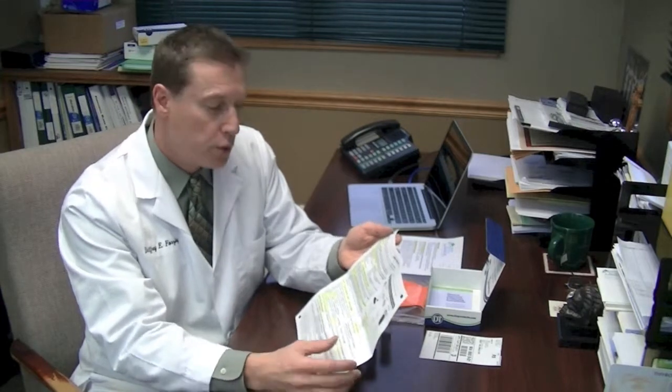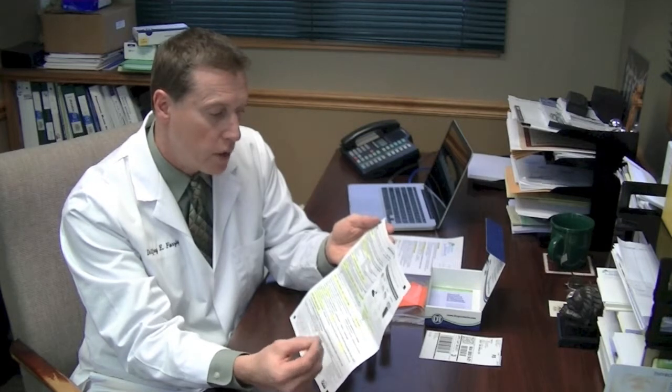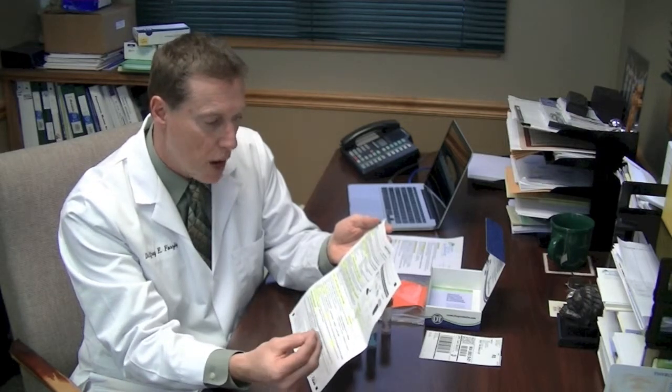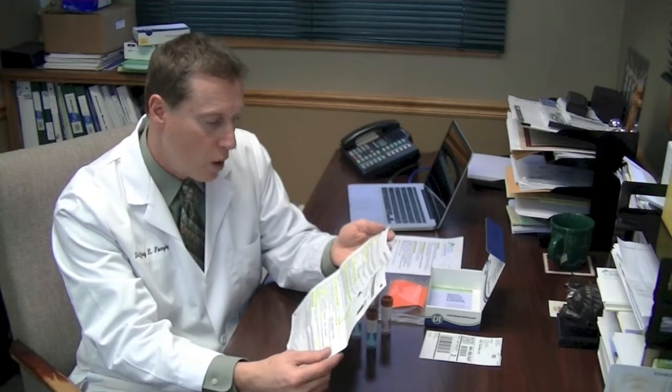So 3 to 4 days prior to doing the test, you have to avoid the following. And there is a whole list of things you need to avoid. Make sure you're familiar with this. You cannot have any of these: vitamins, minerals, iron supplements, fiber, laxative, antibiotics, antacids, digestive enzymes, antifungals, no enemas or suppositories. Follow this list. Step 1 is the first stool collection on day 1.